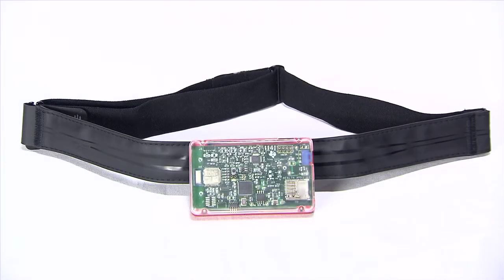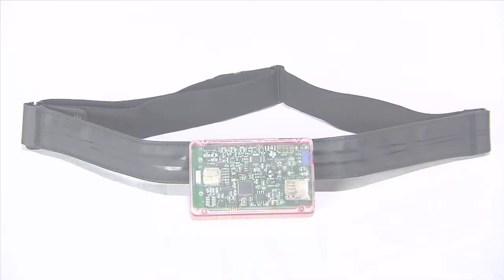Hi, I'm Praveen Arul, Applications Engineer for TI HealthTech. This demo is a single-lead wireless chest strap heart rate monitor solution. This uses an off-the-shelf heart rate monitor chest strap, but we have built a board using TI components that snaps onto the chest strap. The board features the two-channel ADS1292 ECG analog front end that integrates all the necessary measurement and filtering components and sends data to the MSP430F5528 for processing. The BLE module using TI CC2541 sends the data to the iPad for us to see.